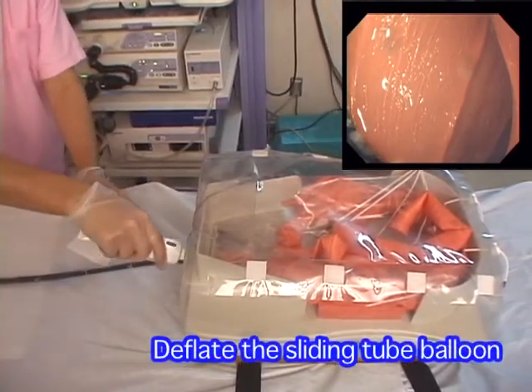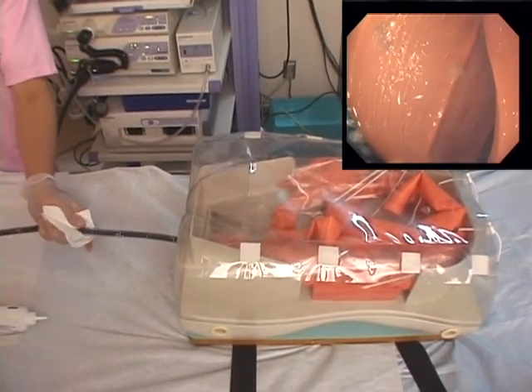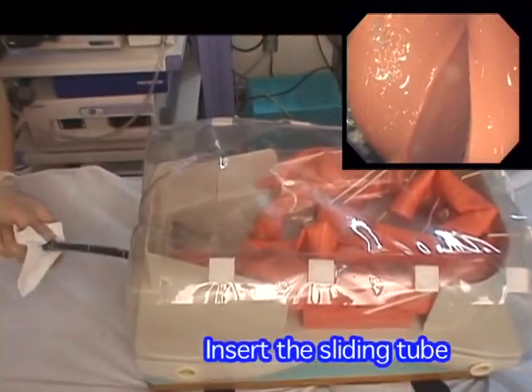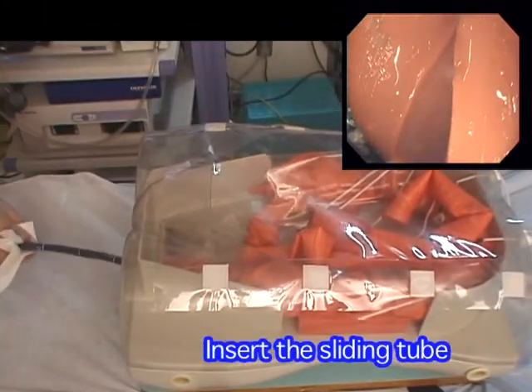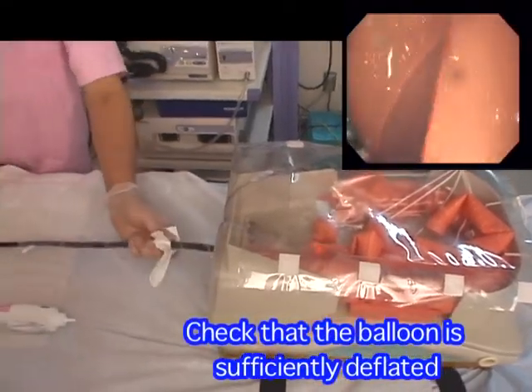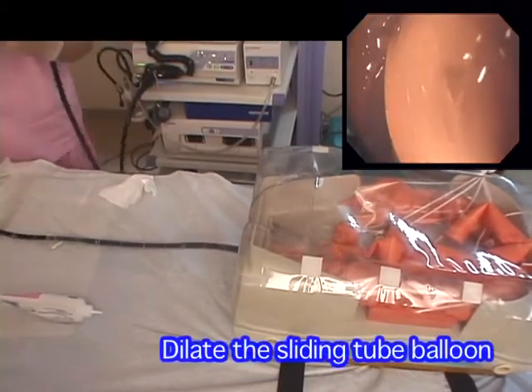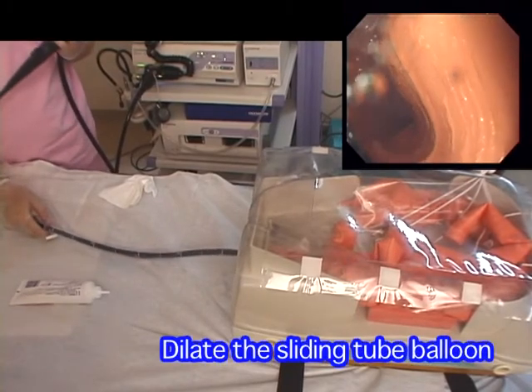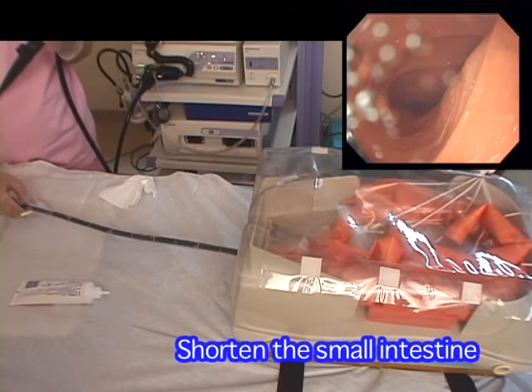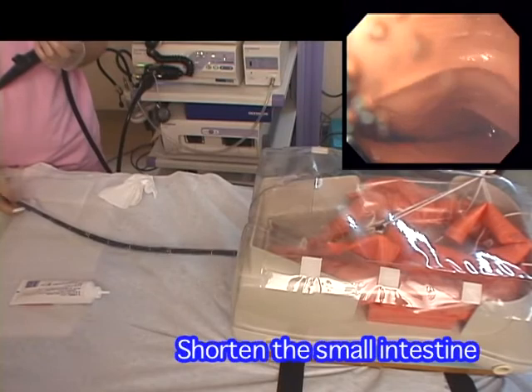Deflate the sliding tube balloon and insert the sliding tube while checking the monitor so that the scope does not come out. At this time, check to make sure that the sliding tube balloon is sufficiently deflated. Inflate the sliding tube balloon and hold the small intestine. Afterward, slowly pull both the scope and sliding tube and shorten the small intestine.